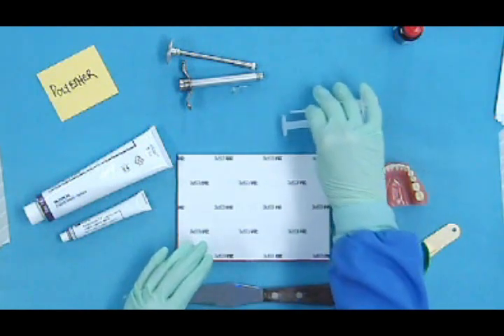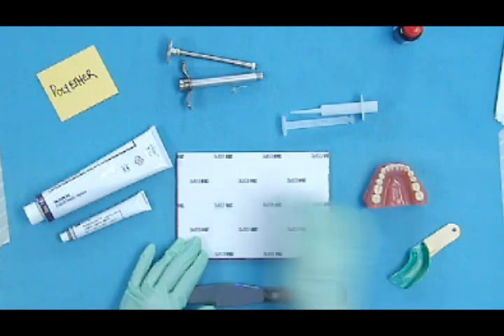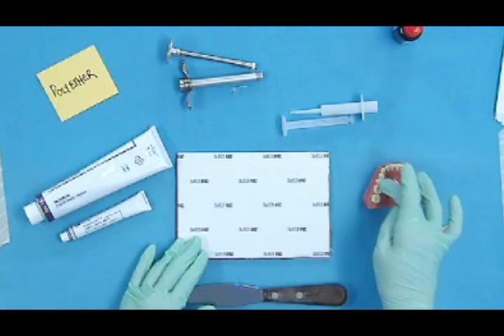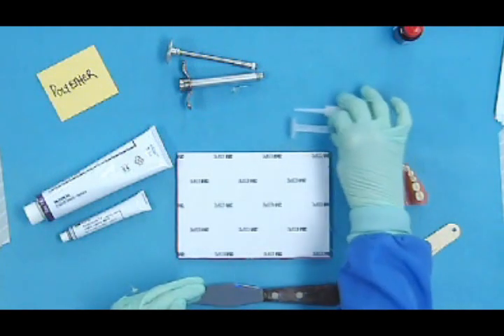And you would have to have some means to deliver the material off the pad into the patient's mouth and inject around so that we could get a really detailed impression in that prep. So we can use a disposable syringe.